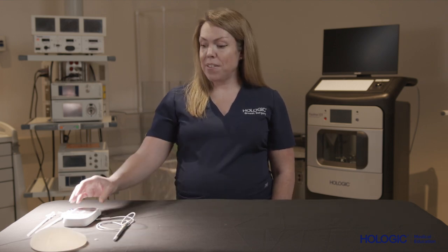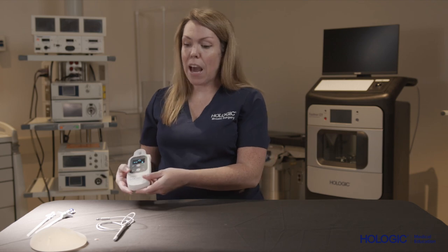I actually have a breast implant here with a few tags that have been implanted in it. So let's go ahead and scan the breast implant with the loop probe to see how it works.